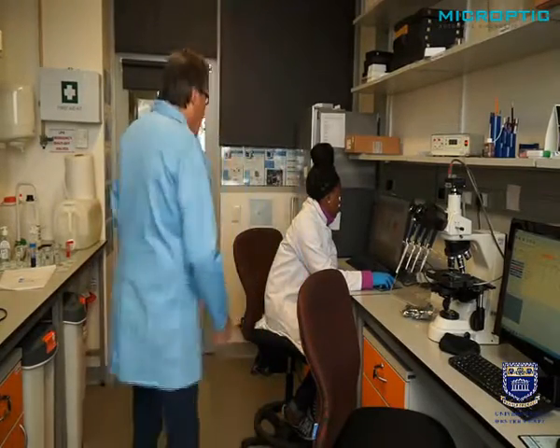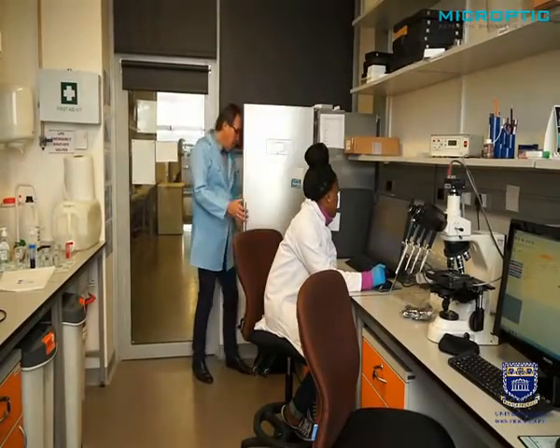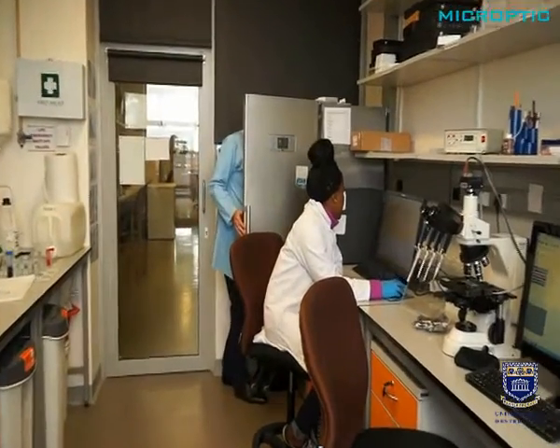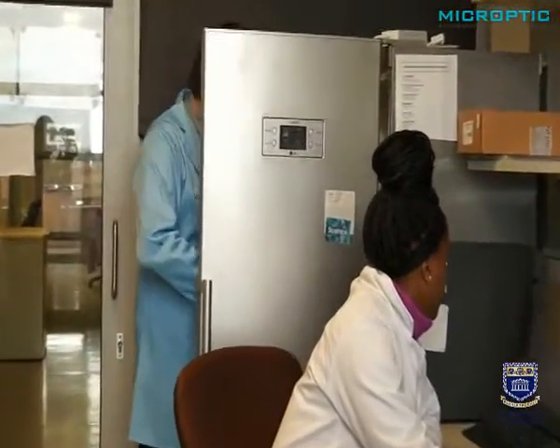Yes, what else is important? We spoke a lot about temperature control, but what about media? Yes, you need to warm up your media also long before the time, but you must take a lot of precaution to keep your media in a good, well temperature controlled refrigerator, and I will show you some of the more important media that we use.